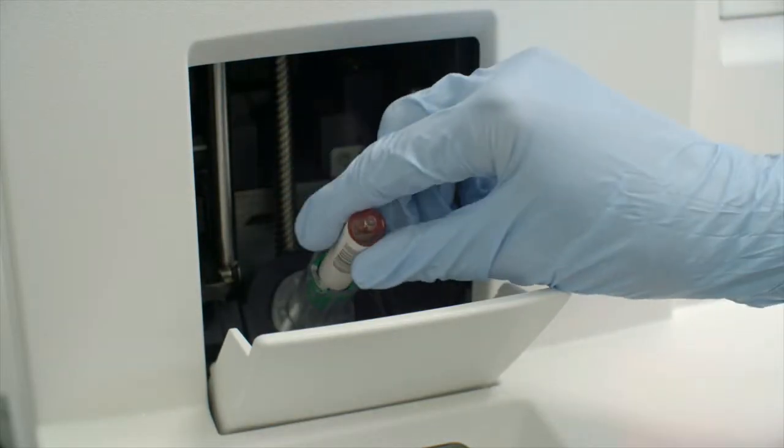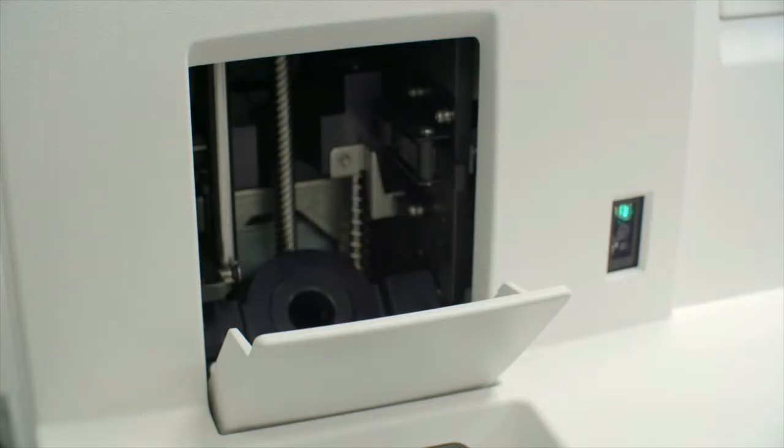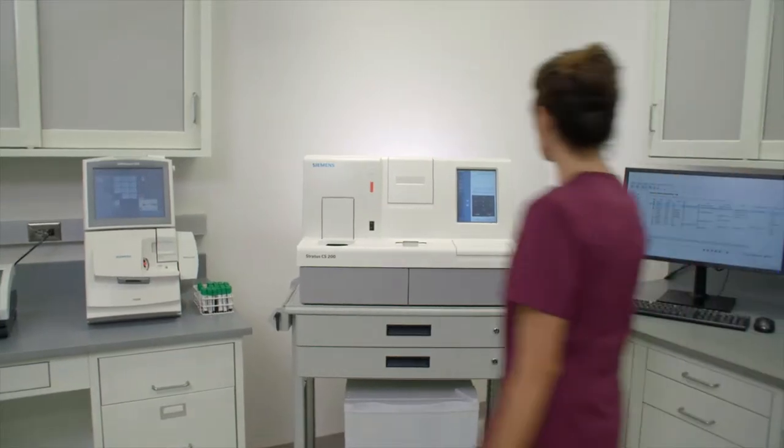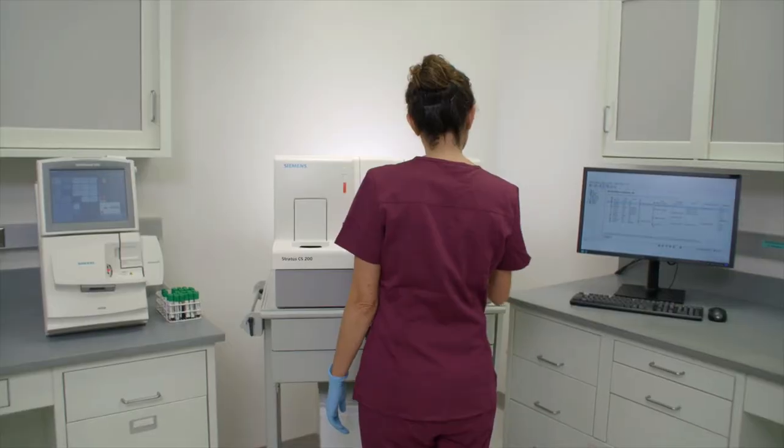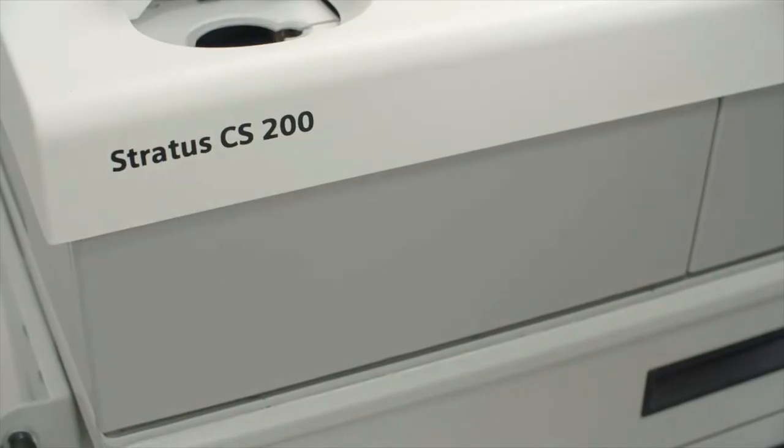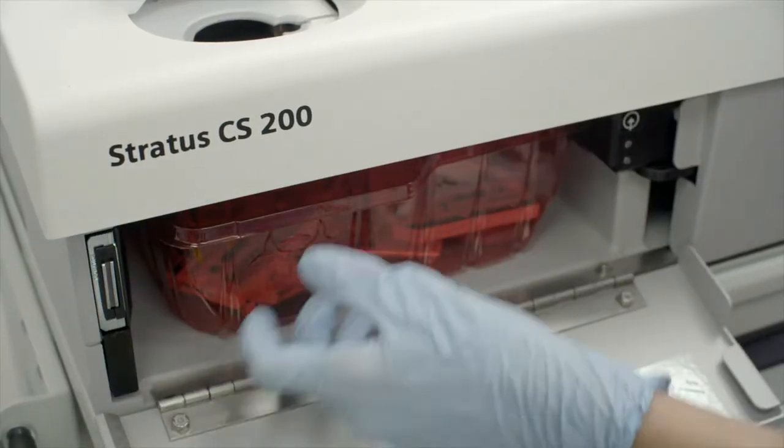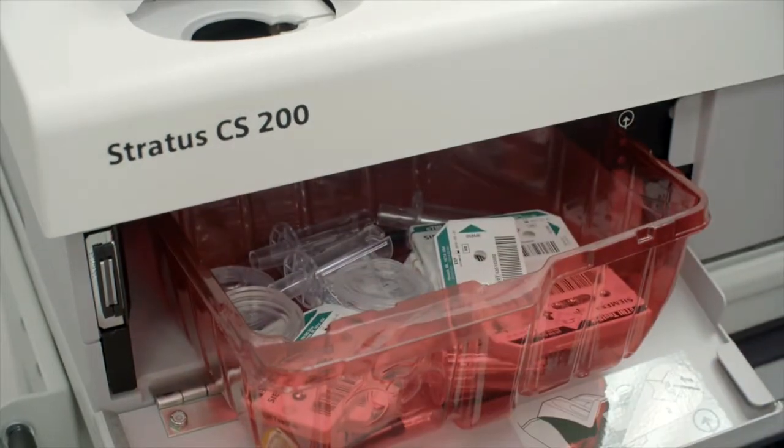When the sample door opens, remove the collection tube with the cannula and dispose them in a biohazard waste bin. However, the sample is still available on the system for further use if necessary. Reagent test packs, rotor and pipette tips are automatically disposed into the waste bin, eliminating the risk of operator exposure to biohazards.